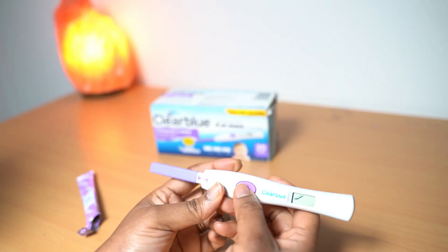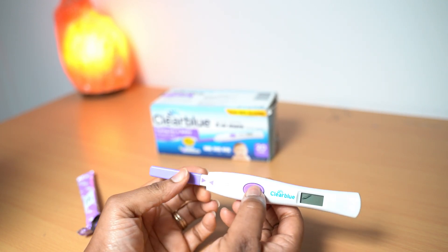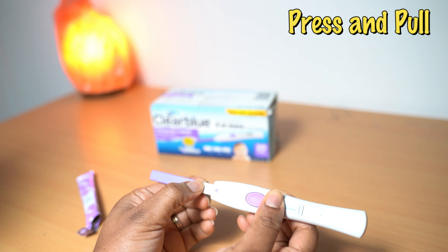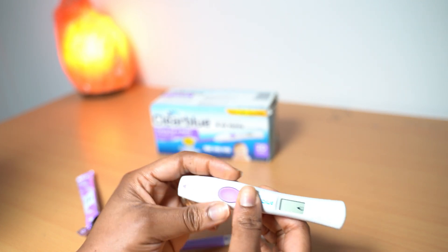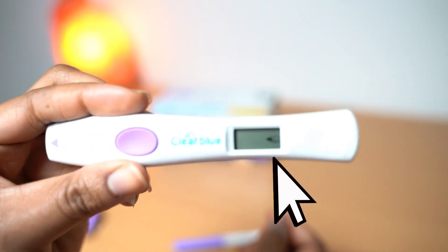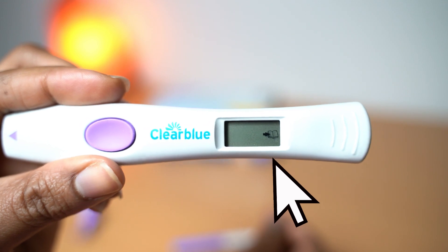That's what happens. How do you take it out? You press here — if I press here it comes out. And that's it. So you see that blinking with a book means that you should refer to the leaflet for instruction.